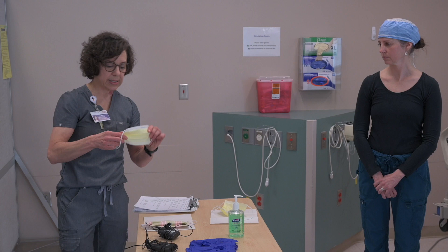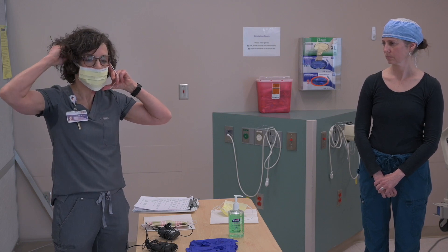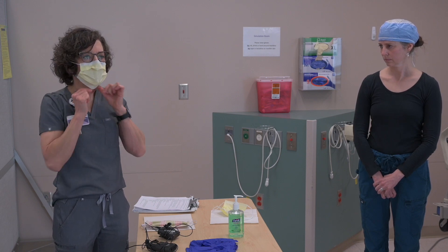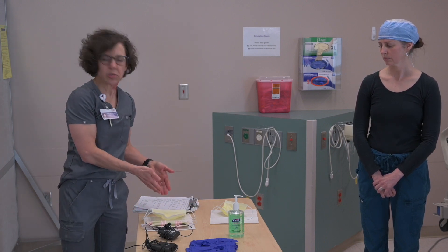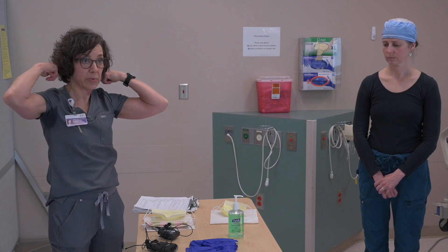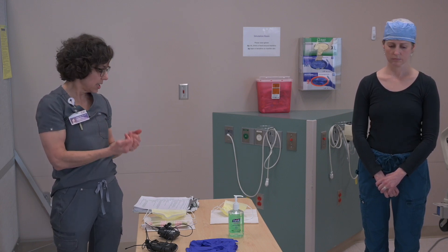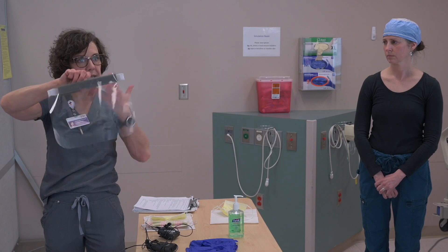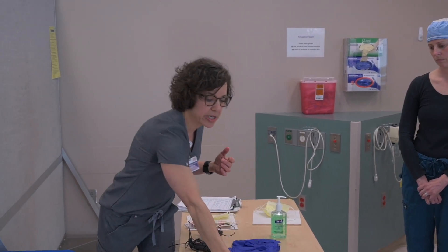This mask is a simple mask, also known as a procedure mask. I'll demonstrate how I put this on — this one has loops that go around my ears. I'm going to take it off so you can hear me talk. A surgical mask is the same level of protection but ties above your ears and also around your neck. We use these for people who are patient-facing or not patient-facing throughout the hospital. This simple mask is also worn underneath a face shield to protect that mask when nurses go into a COVID-19 patient room.